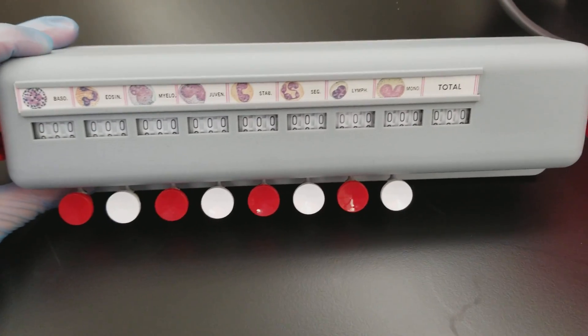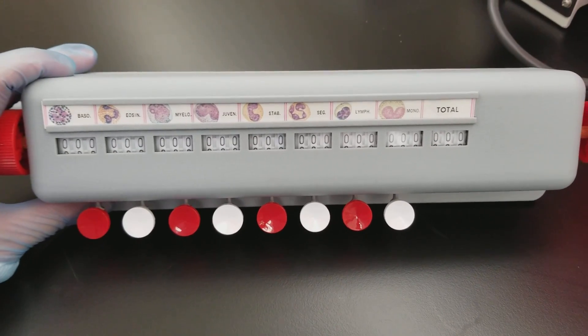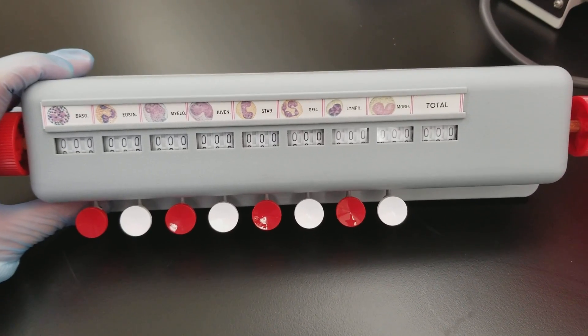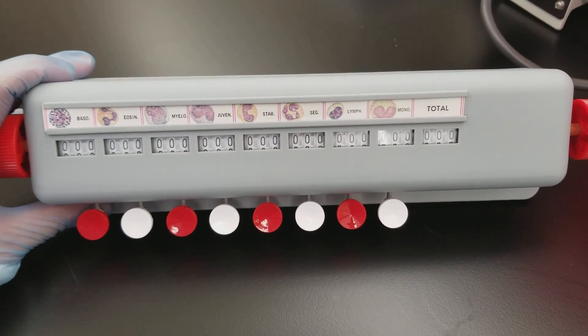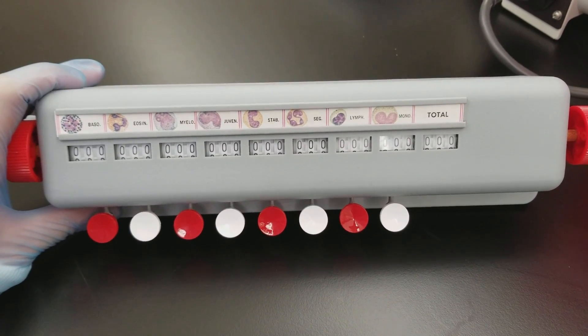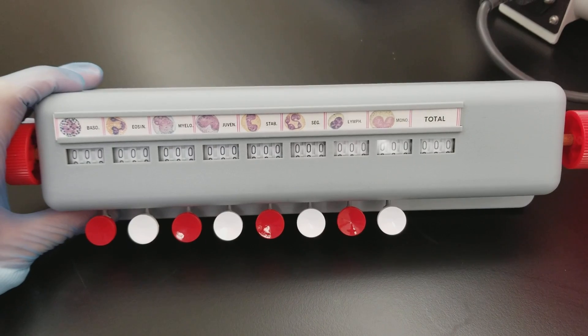Hi everyone. Today we're talking about the WBC counter. This is used when you're performing a manual WBC diff because your automated CBC WBC count or the fractions were looking kind of crazy.